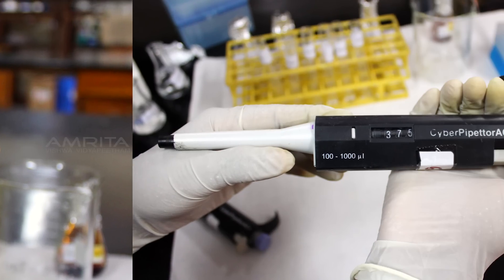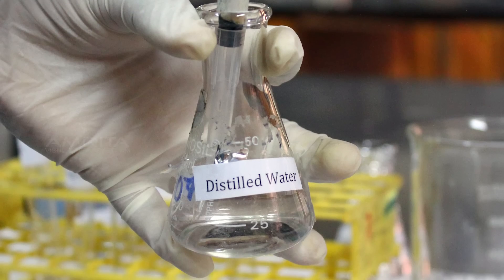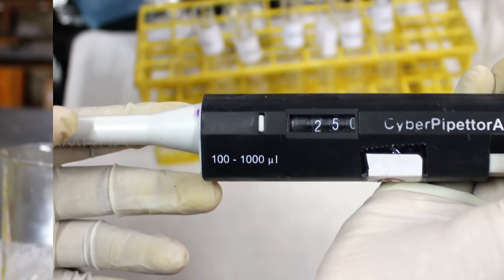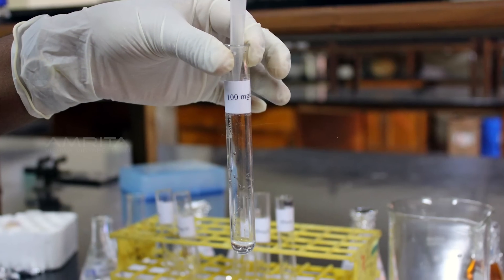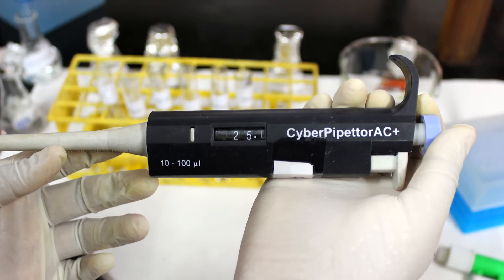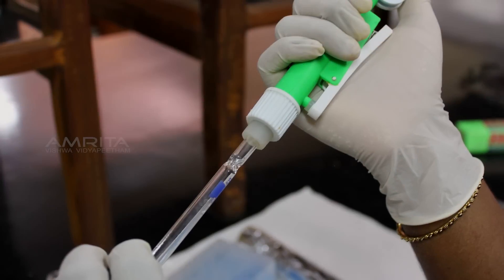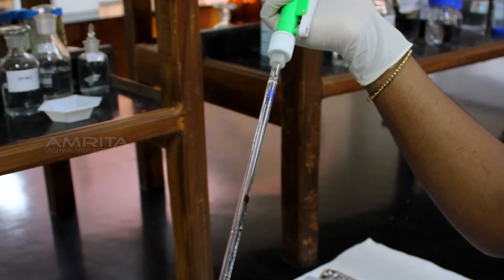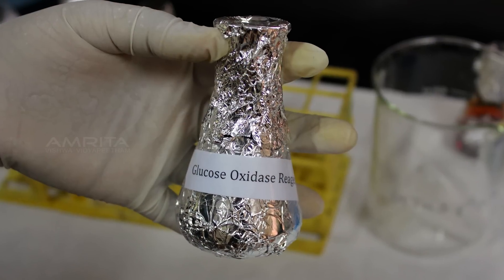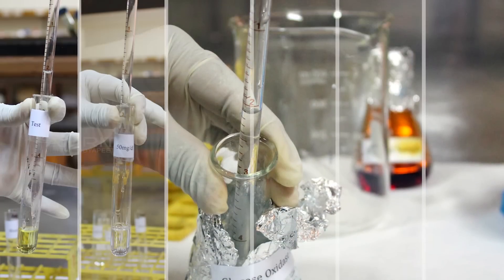In the same way, add 375 microliters of distilled water to the first test tube, 250 microliters to the second tube, and 125 microliters to the third tube. Now connect the glass pipette to the pipette pump and transfer 5 milliliters of glucose oxidase reagent to all the test tubes.